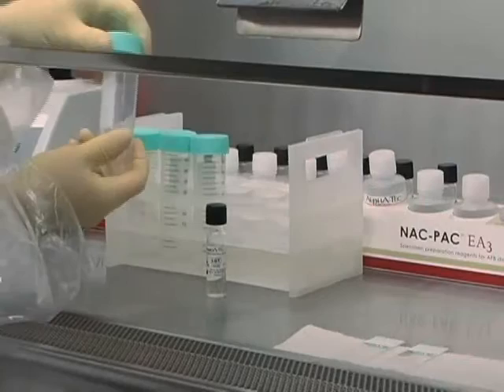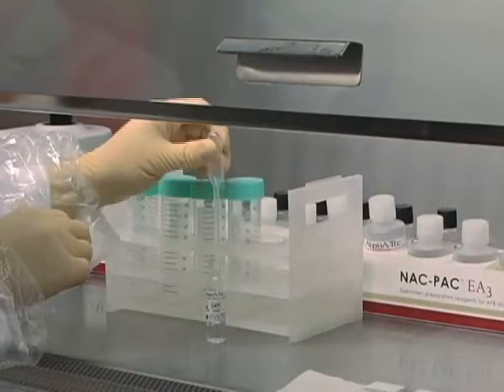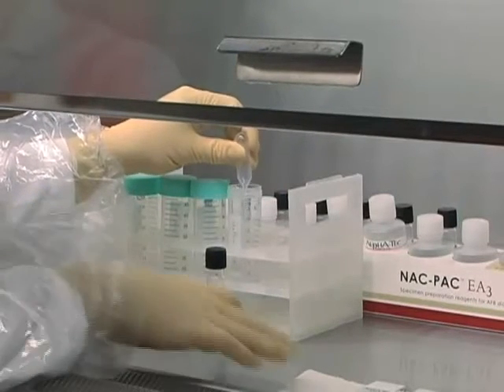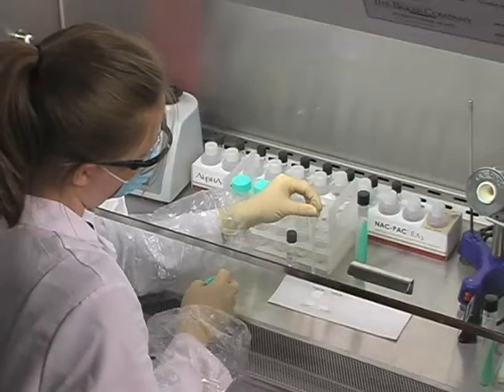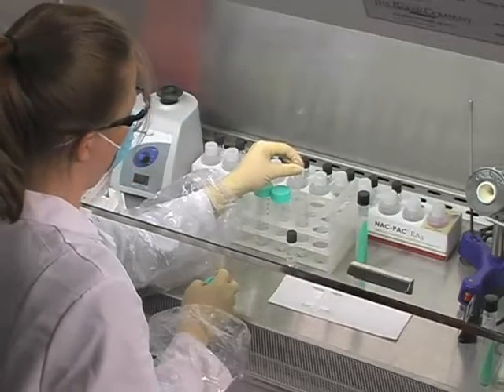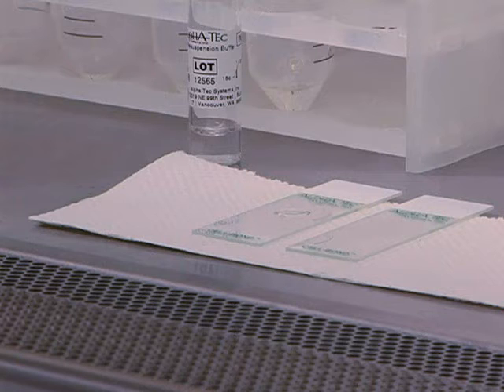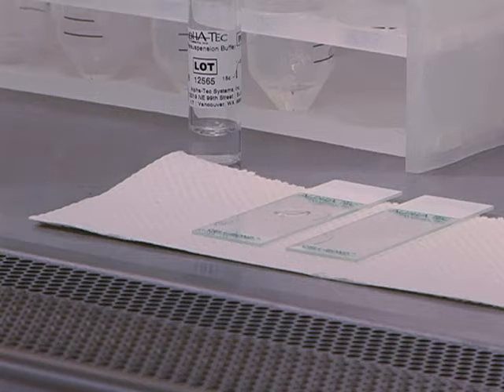Using a sterile, disposable pipette, resuspend the pellet with 0.5 mL of pellet resuspension buffer and mix by gentle aspiration and discharge. Draw up a small amount of the mixed pellet into the pipette and place a drop onto a pair of clean, cell-bond adhesive slides to prepare for AFB staining. By adding only 0.5 mL of pellet resuspension buffer, the sensitivity of the AFB smear will be increased. The adhesive slide is important to hold the smear material onto the slide. Since the bovine albumin fraction 5 reagent is not used in this procedure, the adhesive will also keep it from peeling off the slide during the staining procedure.